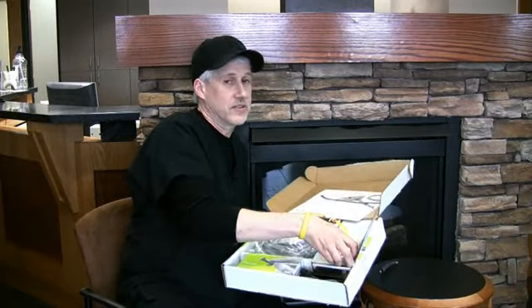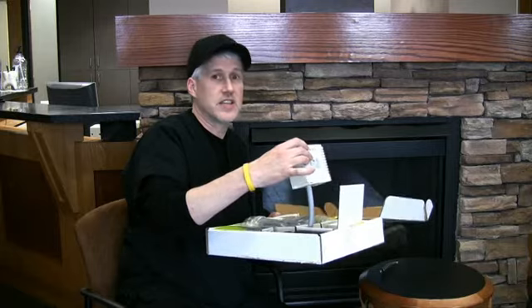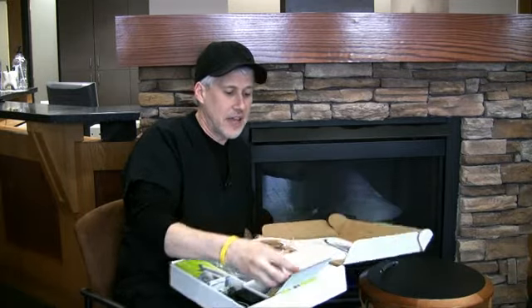One of the things you don't see, once this system is installed in your operatory, all you see is the handpiece and the airline it attaches to. But what you don't see is there are some electronics that come with it. There's a controller box that mounts inside the dental unit, and this controller box has cables and such that attach to things that you don't see.